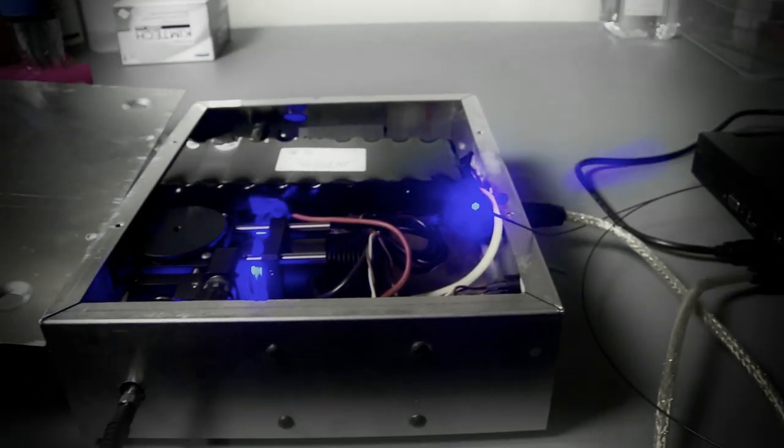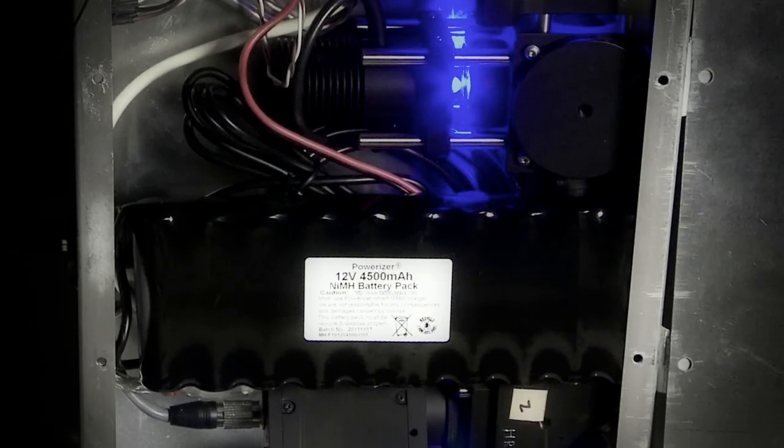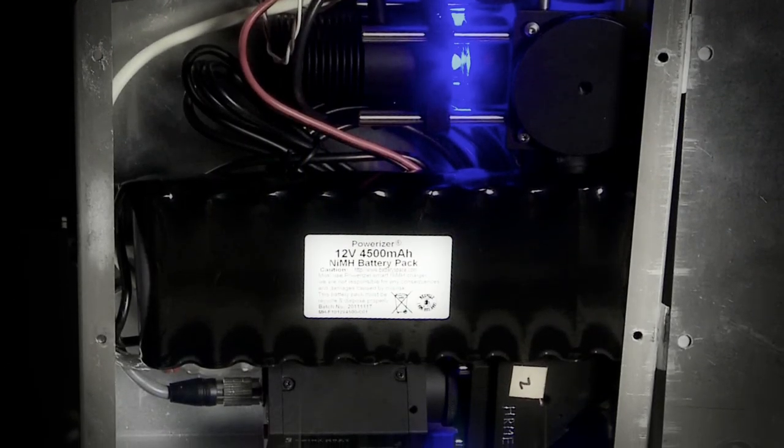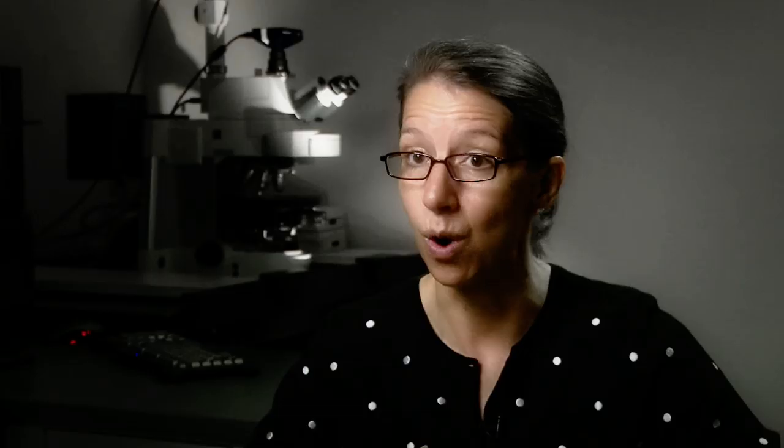The biggest challenge in developing this microscope was to get the technology into a package that was sufficiently portable and robust and battery-powered to be able to be used in settings that might lack wall power and other necessary infrastructure.